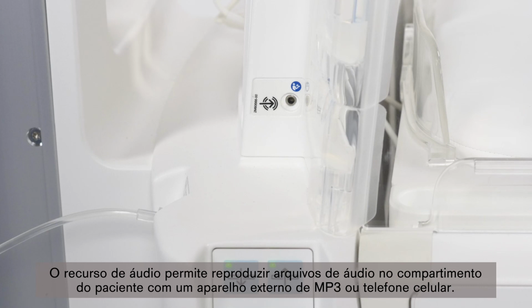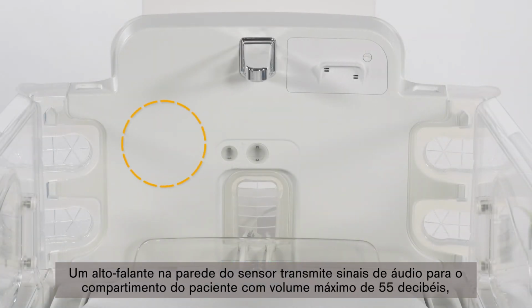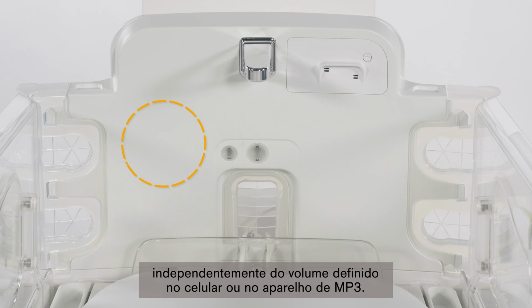The audio feature allows you to play audio files in the patient compartment from an external MP3 player or a cellular phone. A loudspeaker in the sensor wall transmits audio signals with a maximum volume of 55 decibels into the patient compartment, regardless of the set volume on the cellular phone or MP3 player.